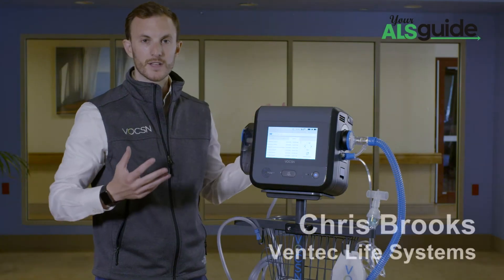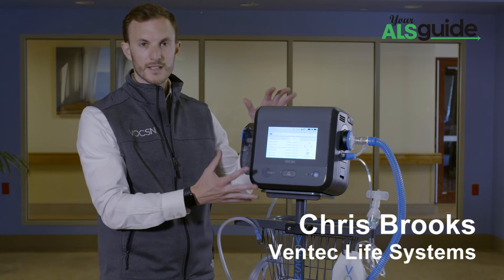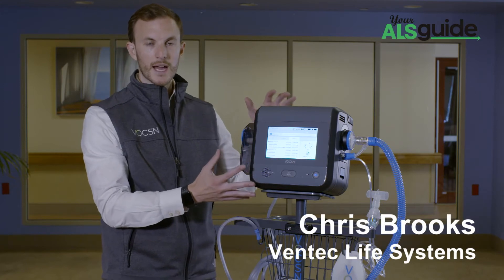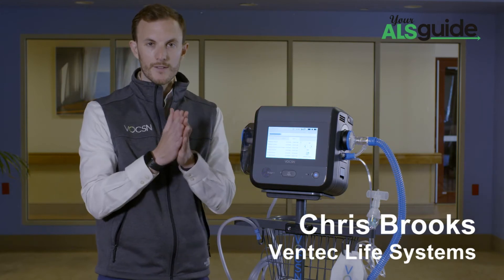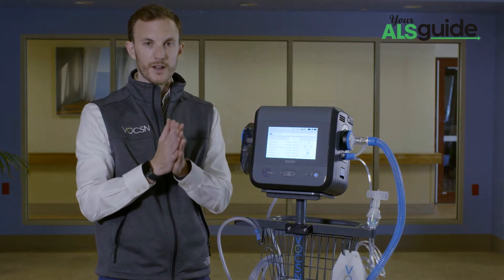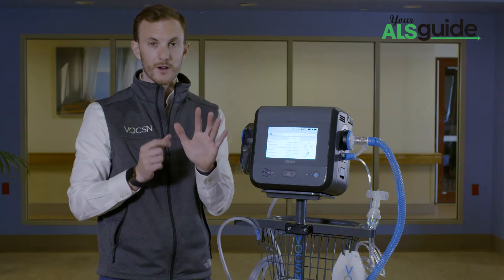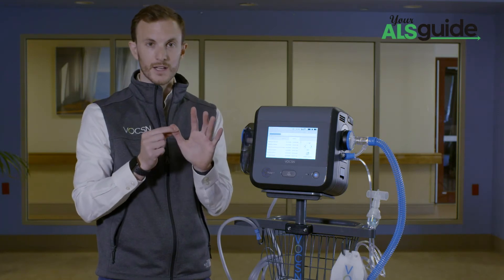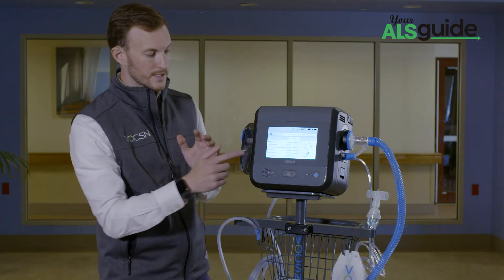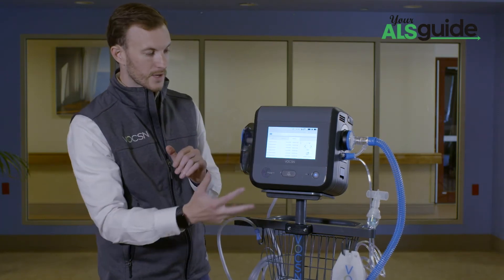We talk about the benefits of integrated care. It's not just that everything is small and compact — you now have the ability to track every single therapy across all five therapies, not just ventilation, to see what happened with my patient.